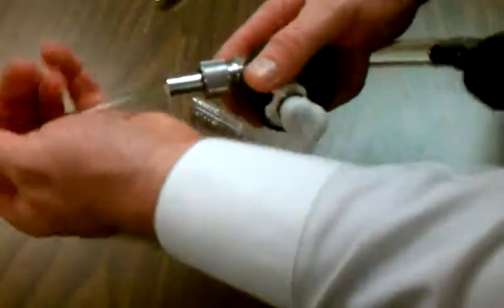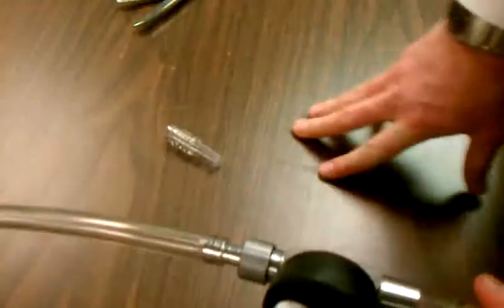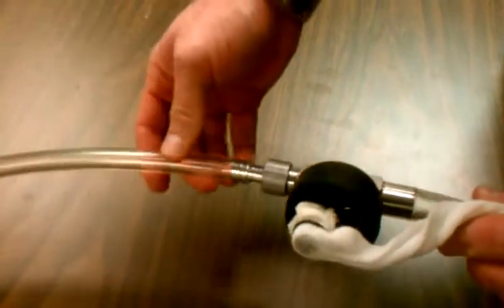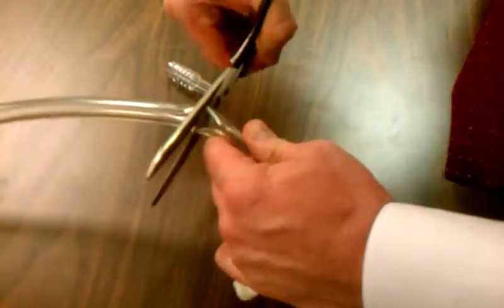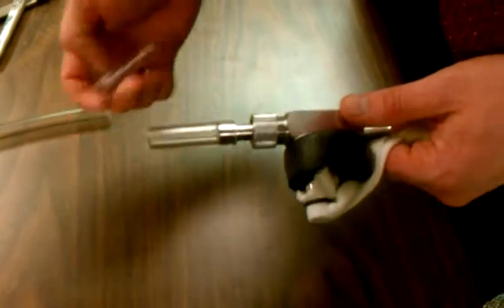Once you've done that, this will actually fit straight onto the nipple and you're able to use it with disposable tubing. Now, if you don't want to do that every time, what you can do is take one clean piece of tubing and cut it into sections. You can use that piece so that you can continue to use the disposable tubing sets without having to cut those. So that's a solution for using a disposable tubing set with the bottle assembly shown here.